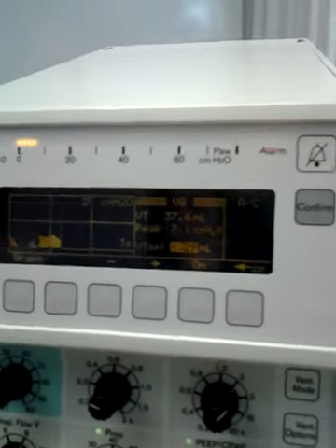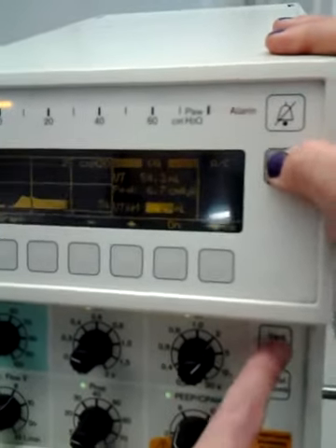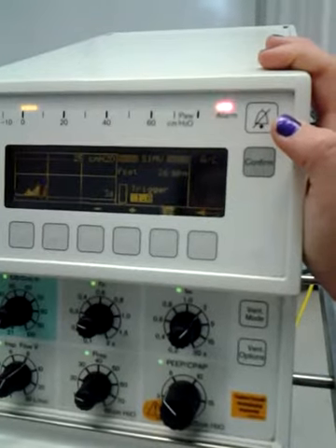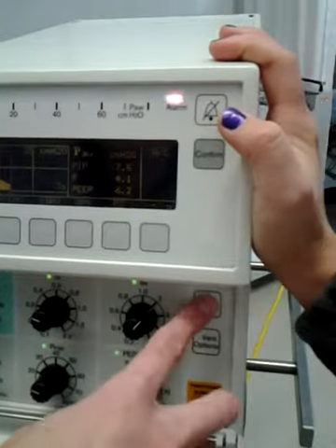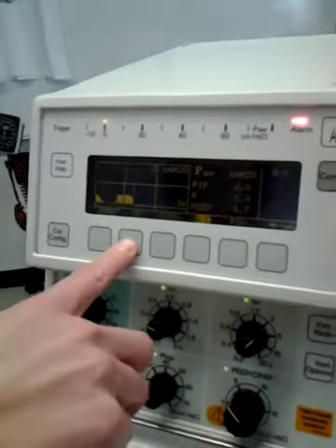So now if you switch that mode, see if the trigger set from the first one stays, like if you switch to SIMV. Yeah. So there's your trigger in the beginning. So you set it at the beginning of your mode switch.